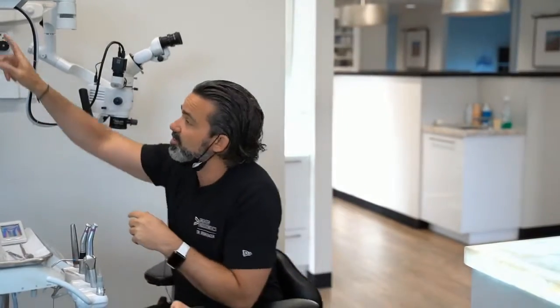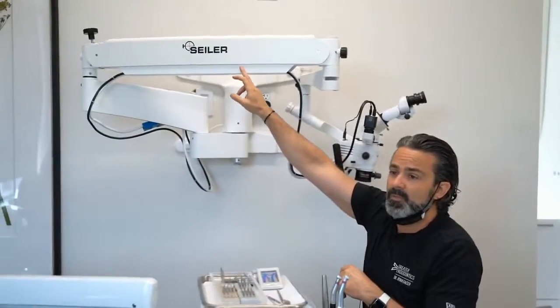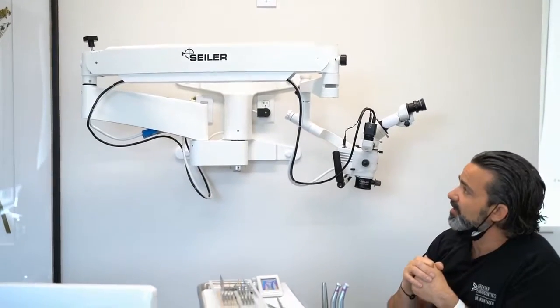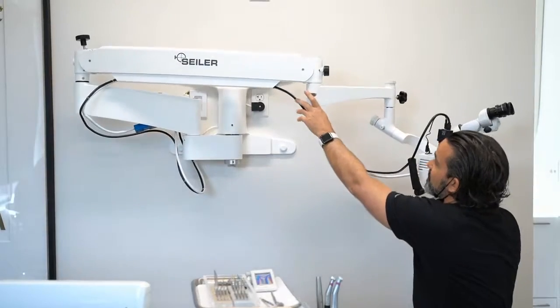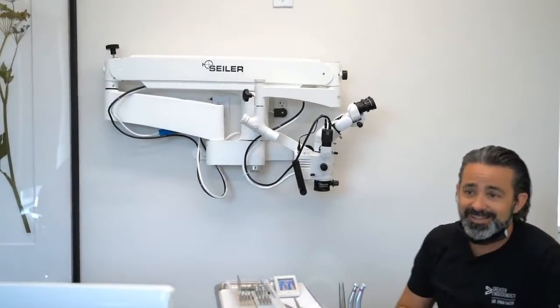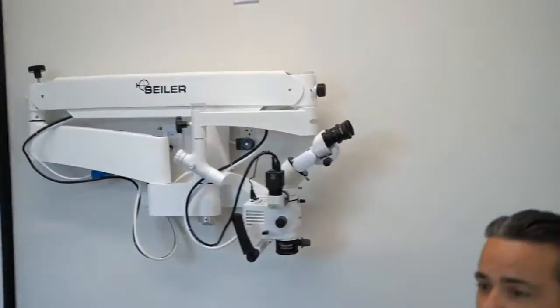One is this boom length that I talked about right here. This was very important to me. And other than my dangling cords that are going to be changed out here, ergonomically, I'm kind of vain. If you walk around my office, you'll get why I'm vain. But I like my microscope tucked up like that, nice and tidy on the wall. Let me get a profile shot of that.